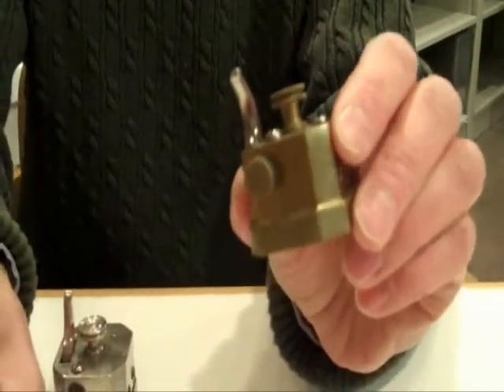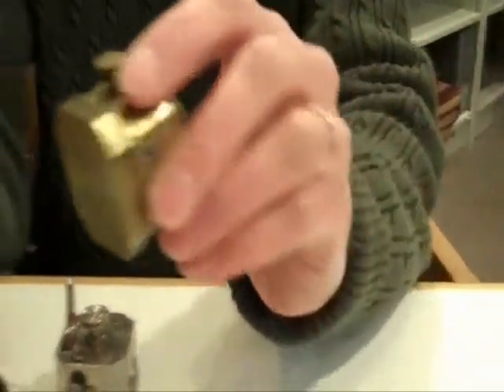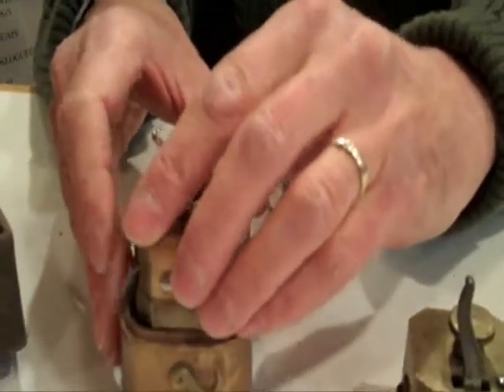Even during the Civil War, this kind of mechanism would be used for bloodletting. So would physicians own just one of these, or would they often have many of them?